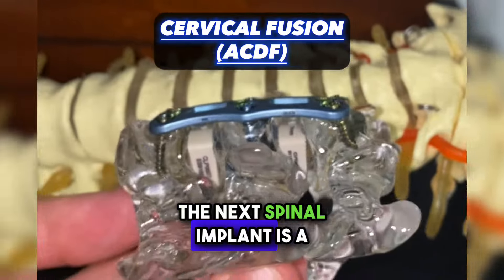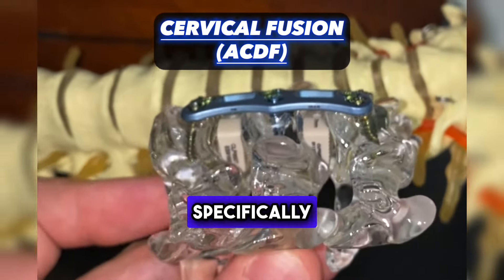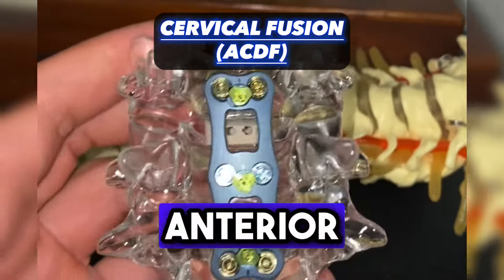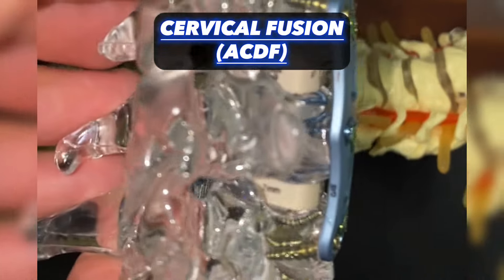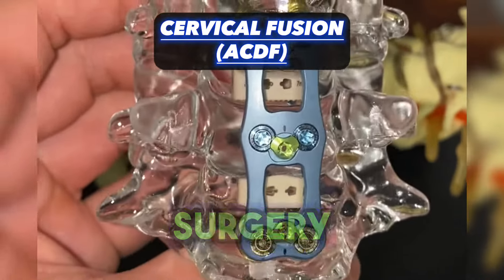The next spinal implant is a cervical fusion, specifically an ACDF — Anterior Cervical Discectomy Fusion. This is the gold standard for cervical spine surgery.